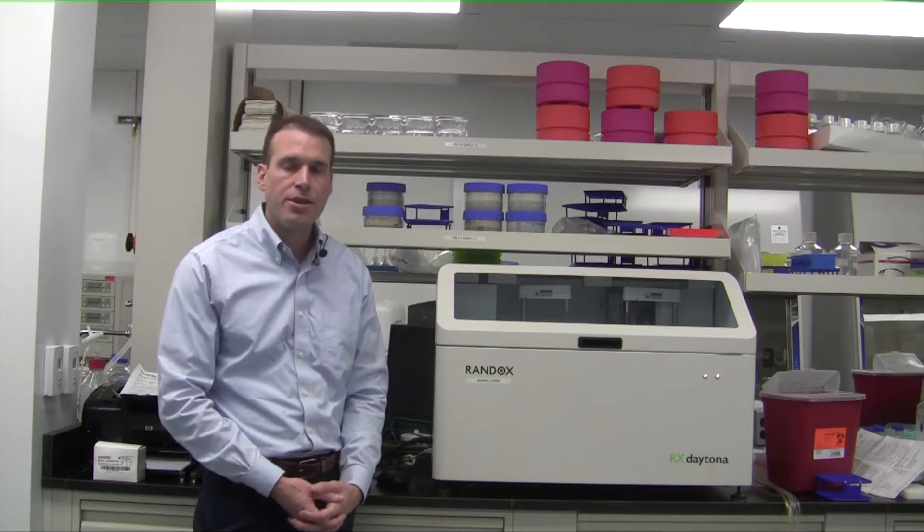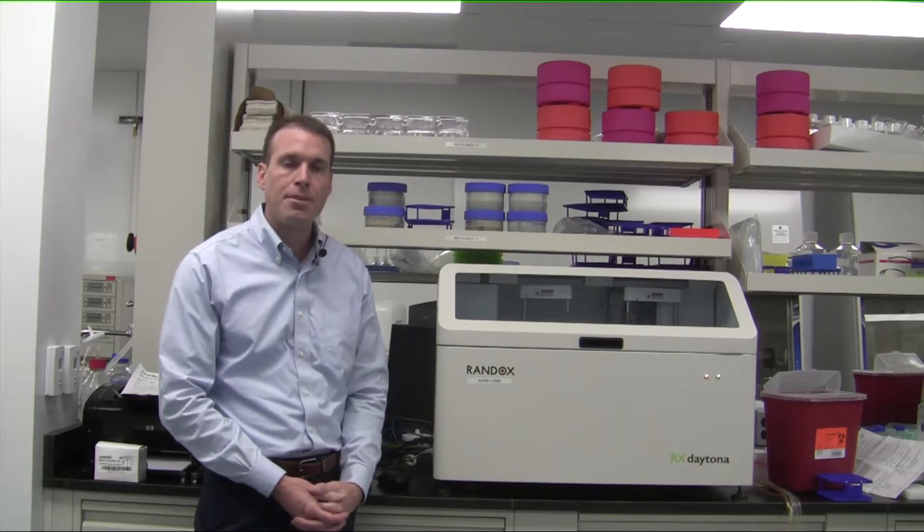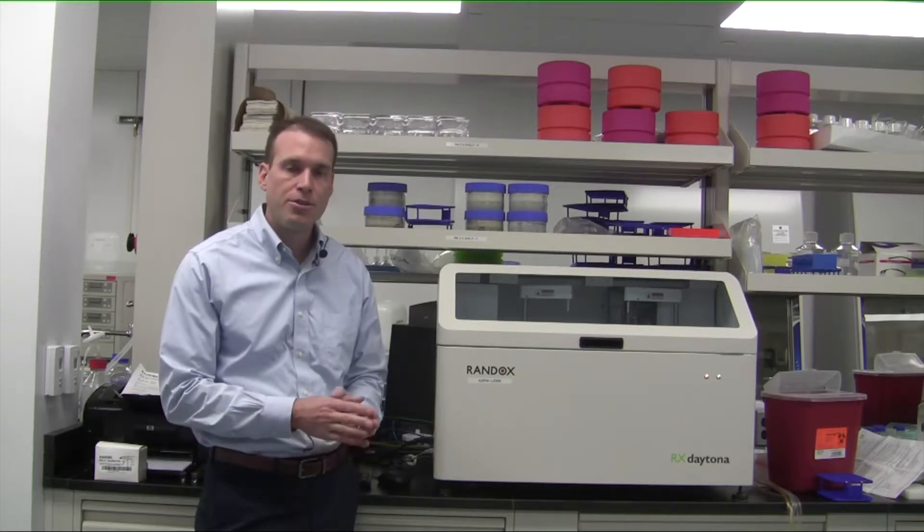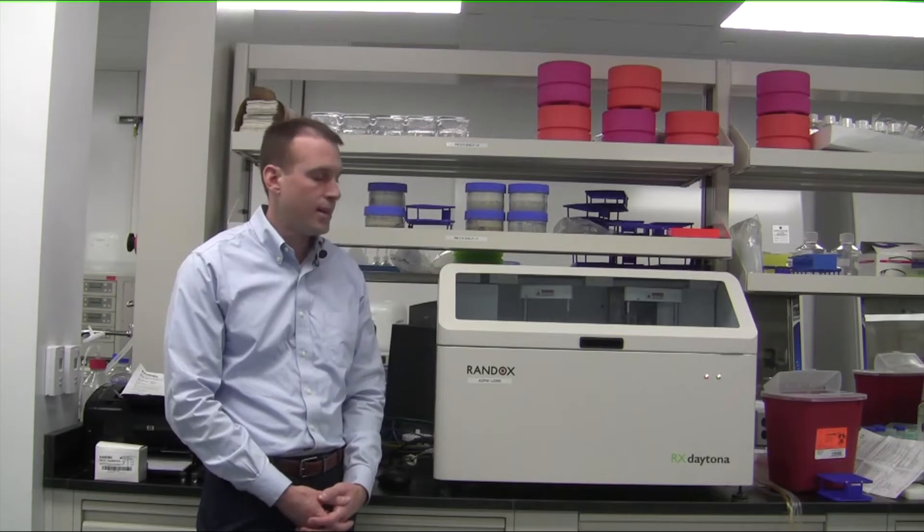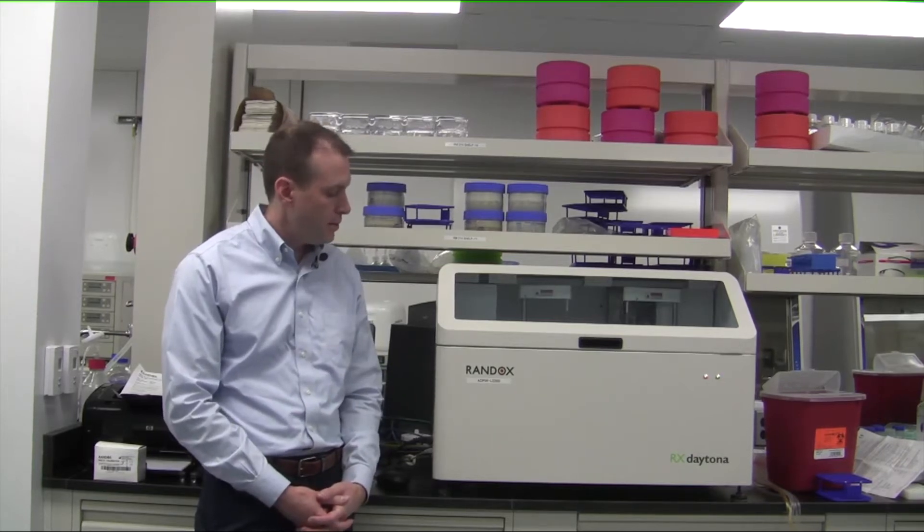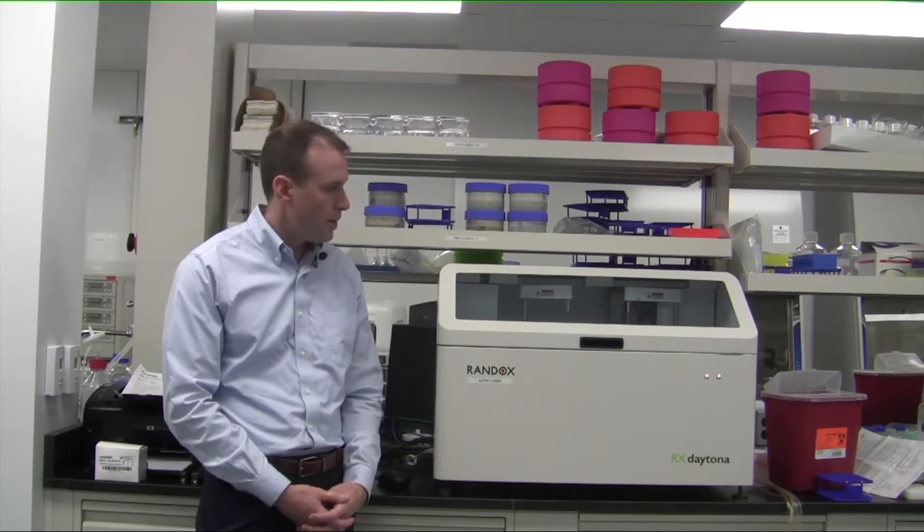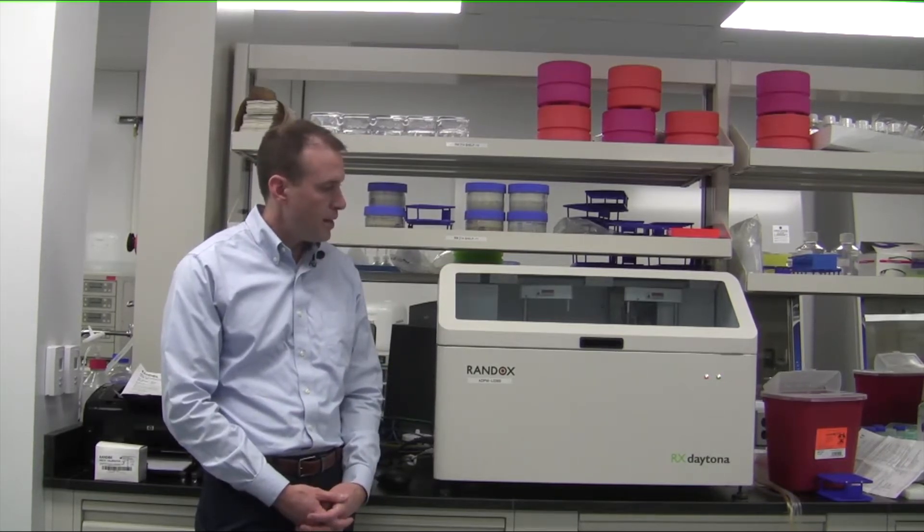An enzymatic reaction occurs within that cuvette and then a color is created based upon that enzymatic reaction. With a colorimetric measurement at a specific optical frequency, the color is correlated to a metabolite concentration. The instrument is very easy to use, very low maintenance, and the data is very robust and repeatable.